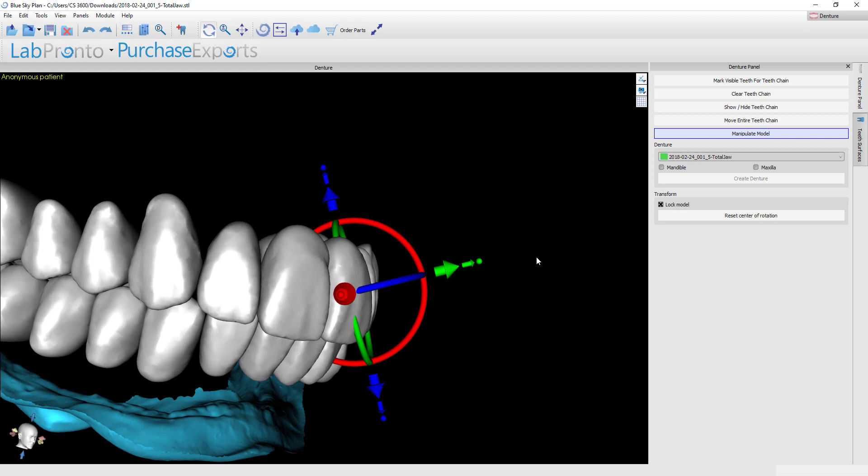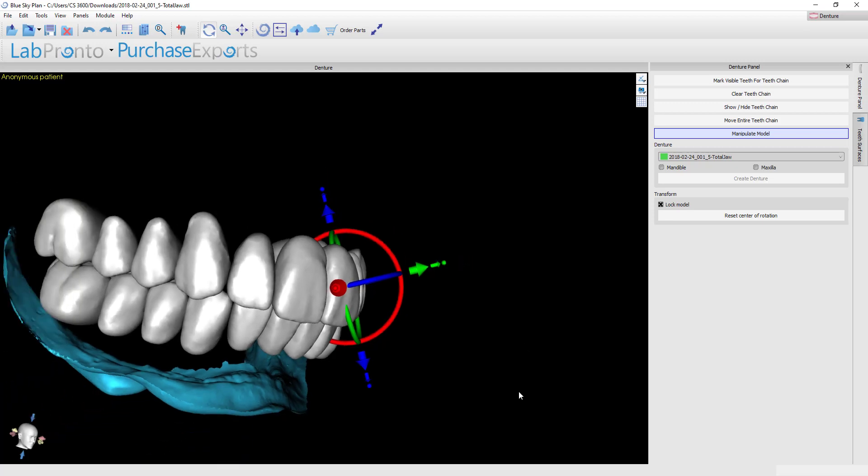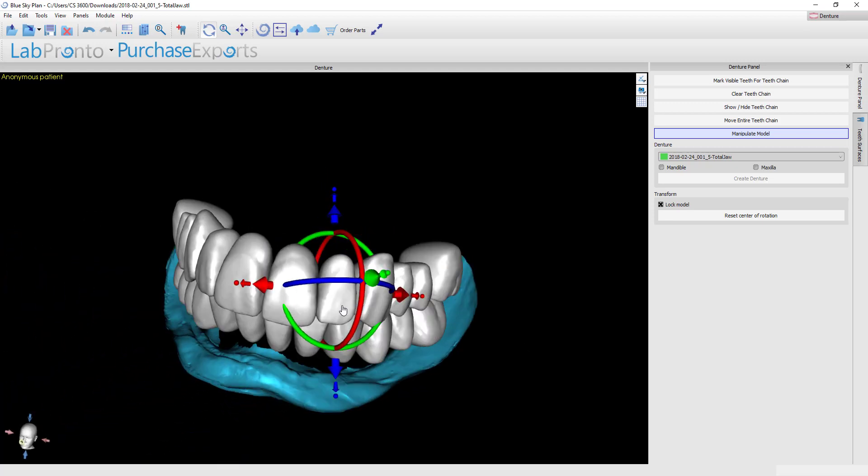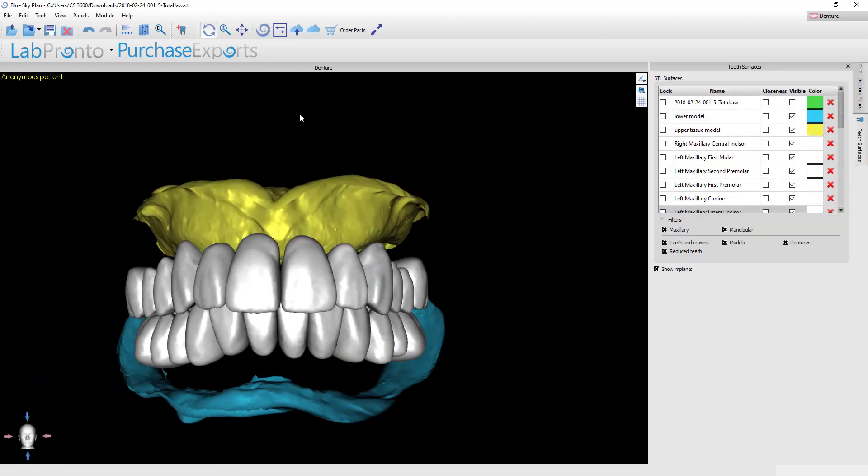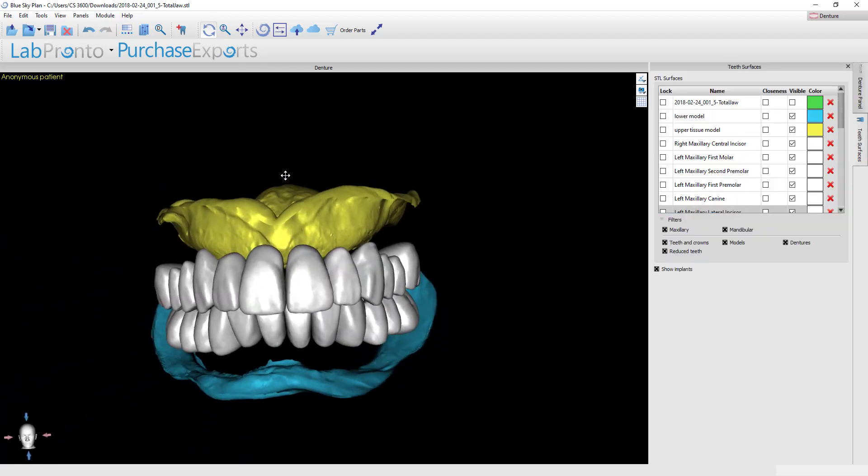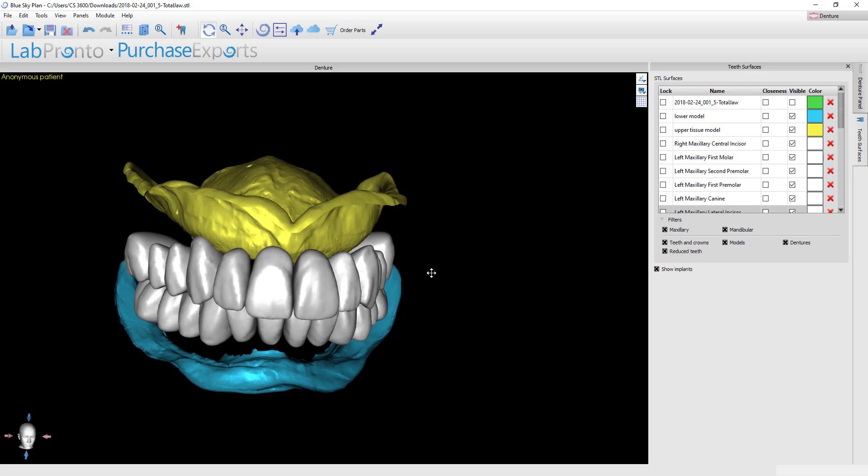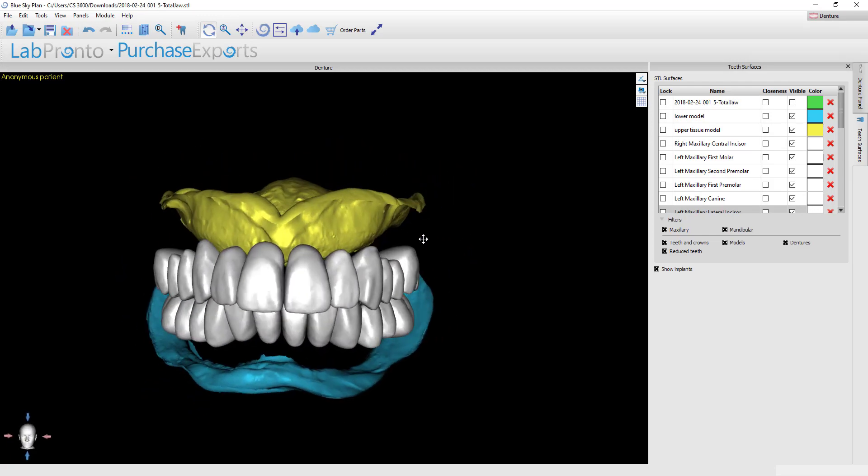You can make as much individual tooth movements as you want. It's just that for a typical denture the goal is to try and expedite this process as much as possible, so the less of that kind of characterization I can do the better. For most patients they want an ideal setup and this is going to get you there very efficiently. So with the tooth setup now complete we are ready to proceed with making the denture bases.